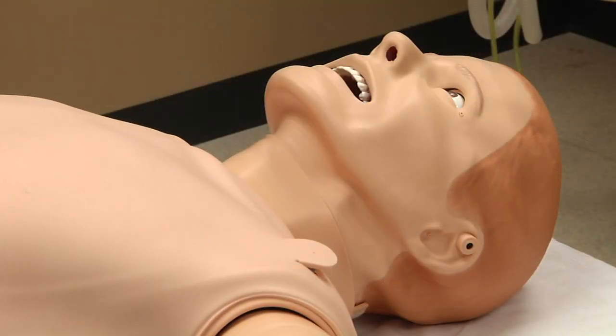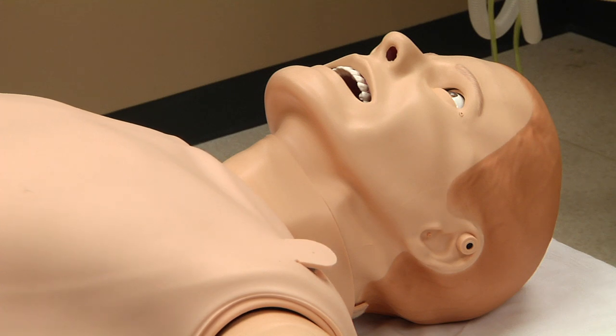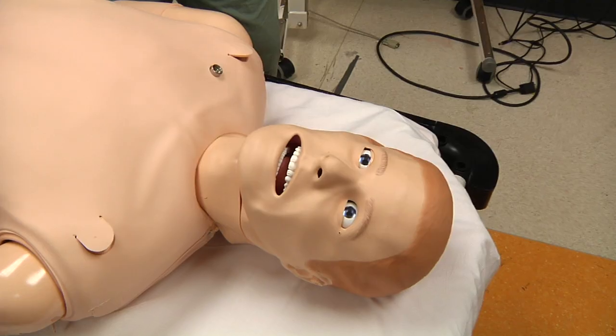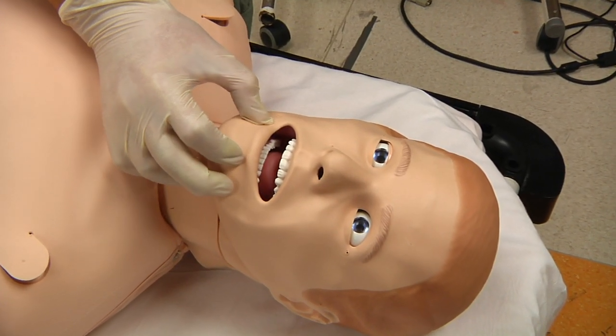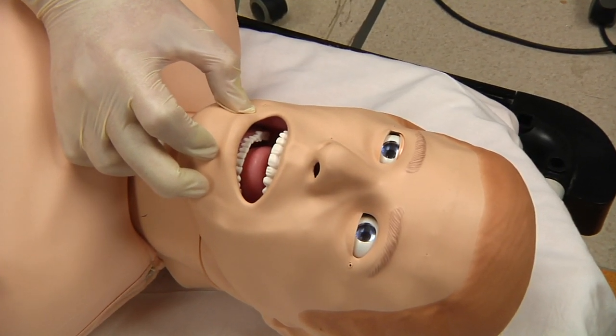For example: "Please, give me something for this pain. It hurts. It really hurts." SimMan 3G is also able to recreate several airway complications.